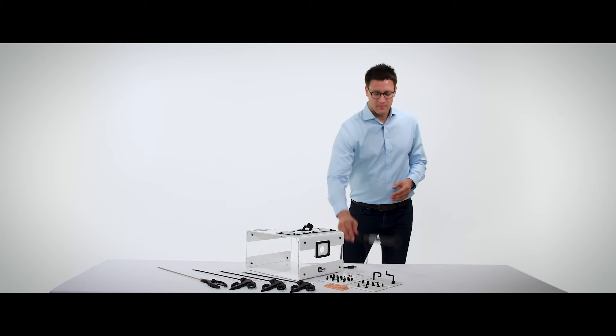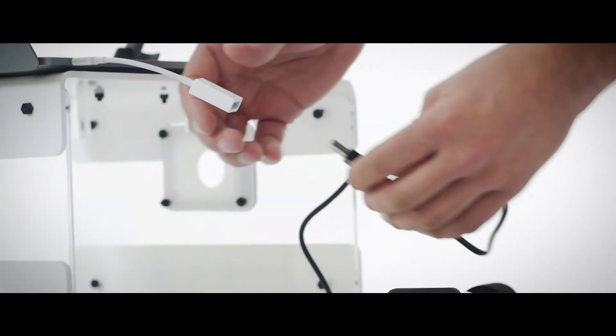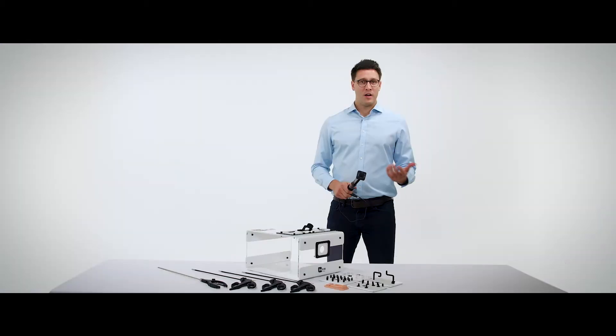The scope itself comes with a 1080p USB camera, which can be plugged into your PC, tablet or laptop at home. The scope also has a direct light source, which means we're able to illuminate the operative field in the same way as in true laparoscopic surgery. This creates the same shadowing we'd expect to see during laparoscopic surgery, creating a truly close-to-life laparoscopic simulated environment.